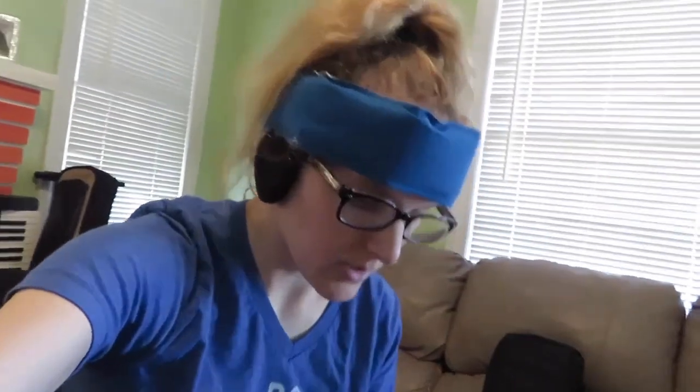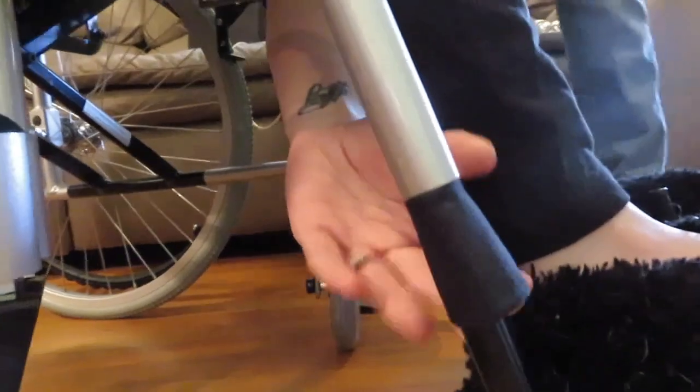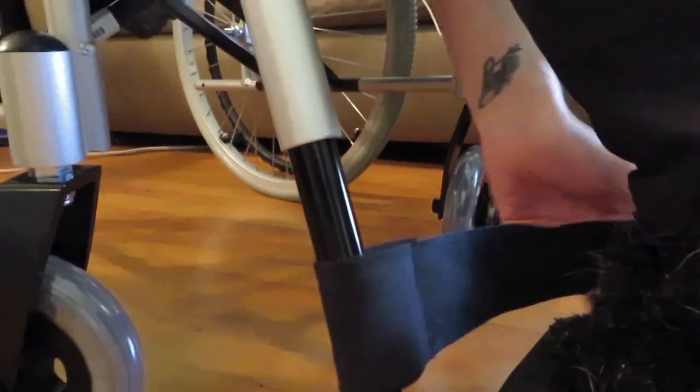It's comfy. Of the three color options, I'm glad I picked this one. With a cushion, sitting up a little bit, those footrests would be perfect — you don't want them much lower or they'll scrape the ground. So we got them set up. You can see it's got the ankle and heel straps to keep your foot from sliding backwards.